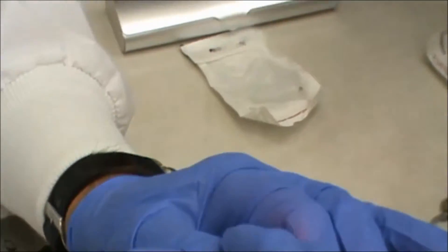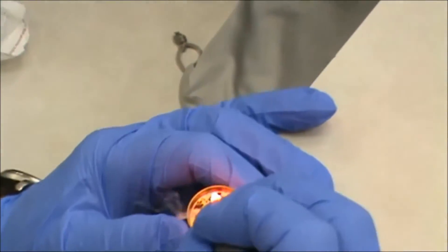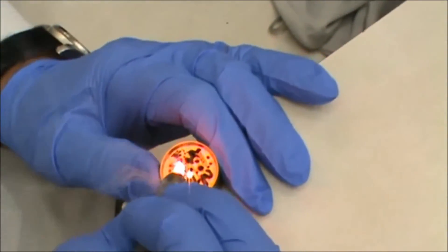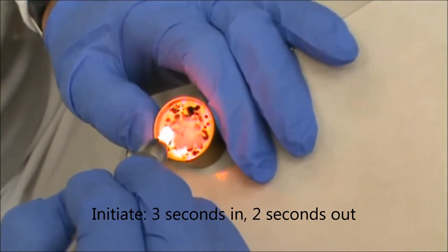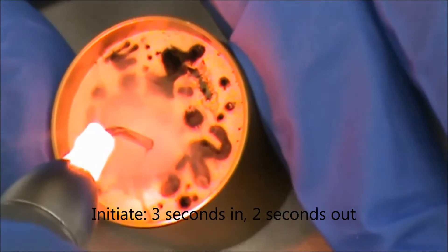To initiate the tip, we're going to squeeze. And you can see that it is working. We're going to place the tip in one, two, three. Count one, two, bringing it out.